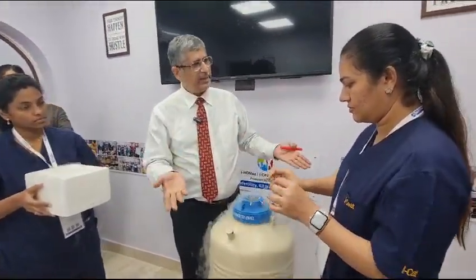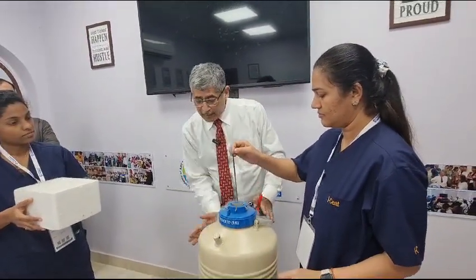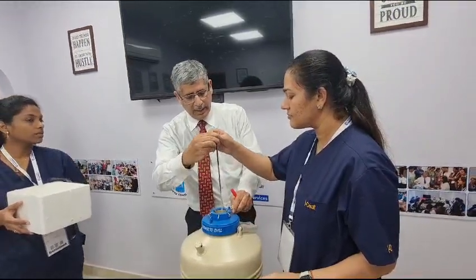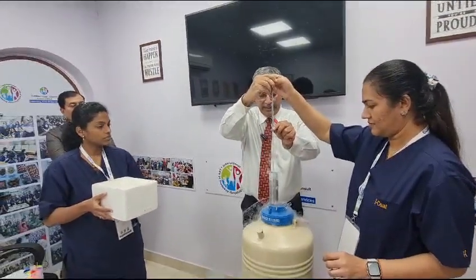Put it back — fantastic. Now take one out. The concept here is that it is getting locked here. To take it out, gently rotate and it will come out. This is the way it comes out, and then put it back.